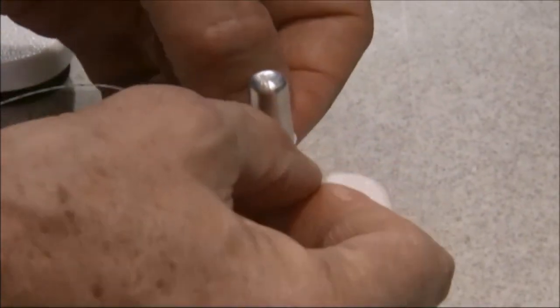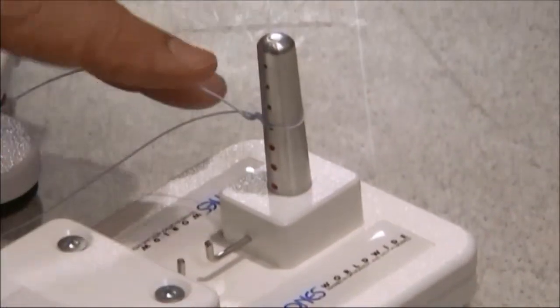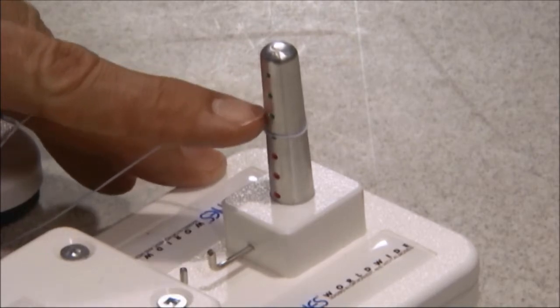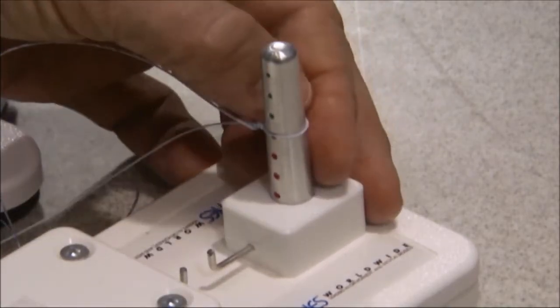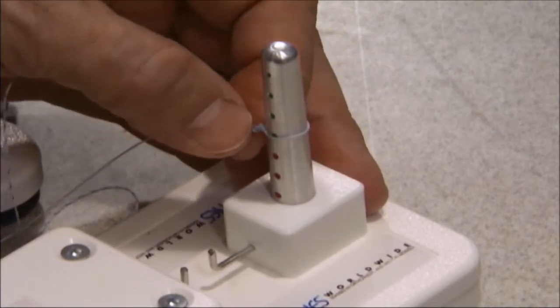I'm going to slide it back onto my measurement device. And as you can see, now this loop has expanded one, two, three. And we're just about down to three millimeters of loop displacement. And that's not acceptable.